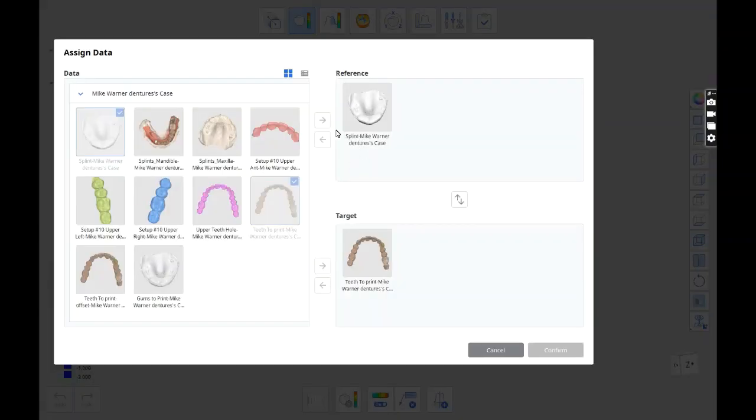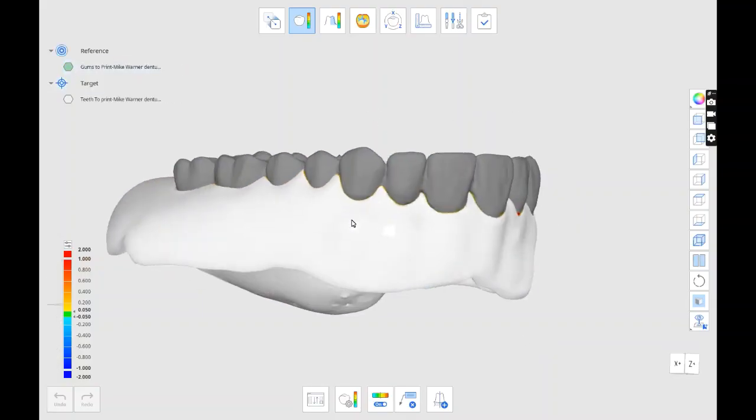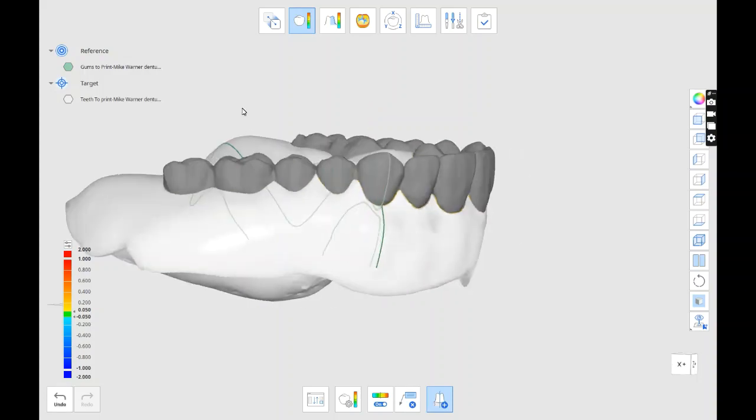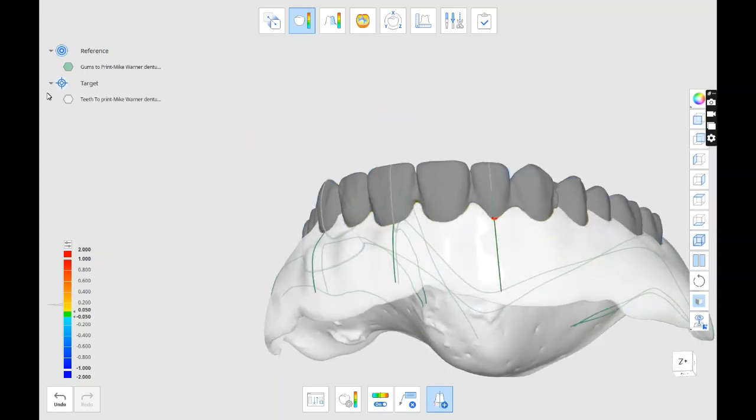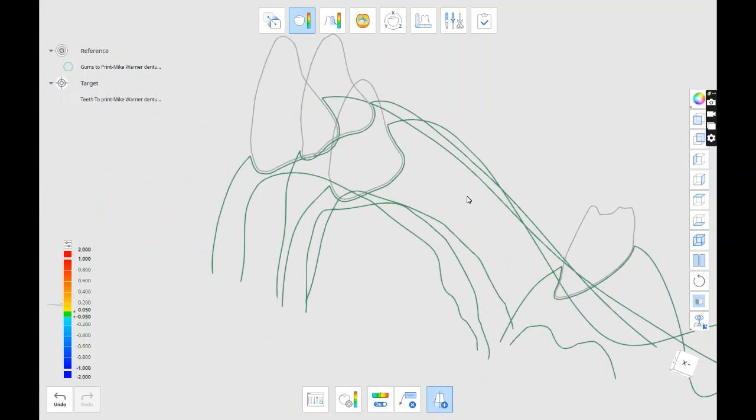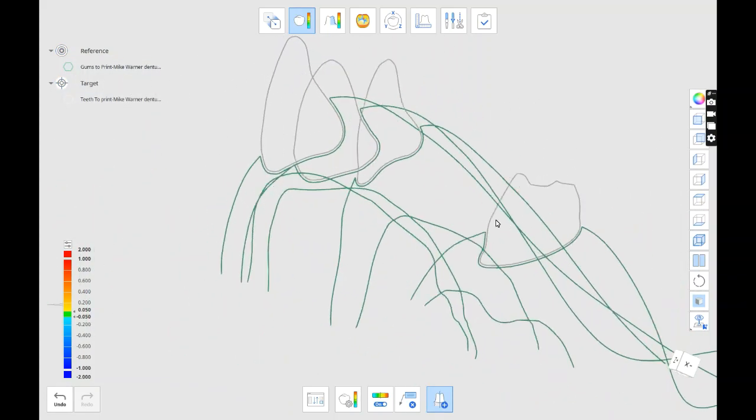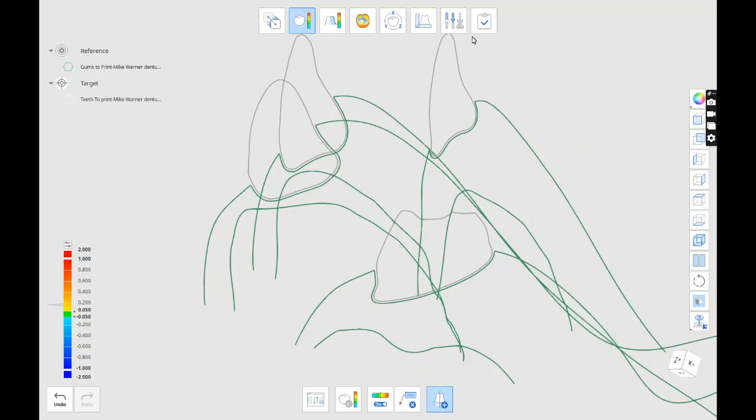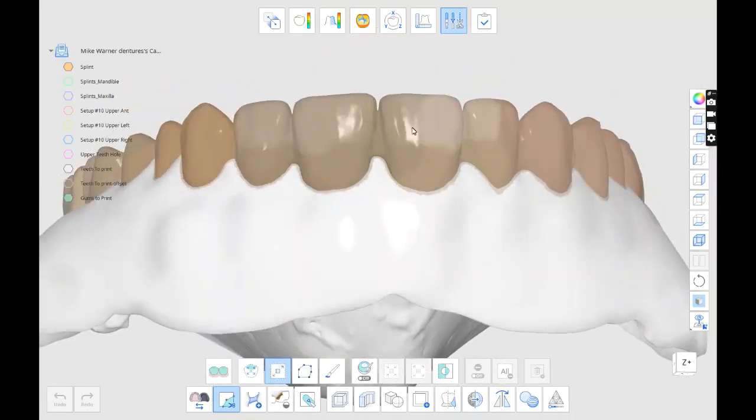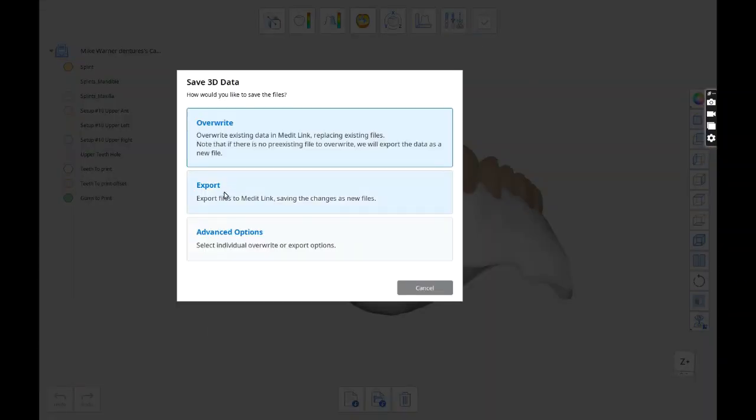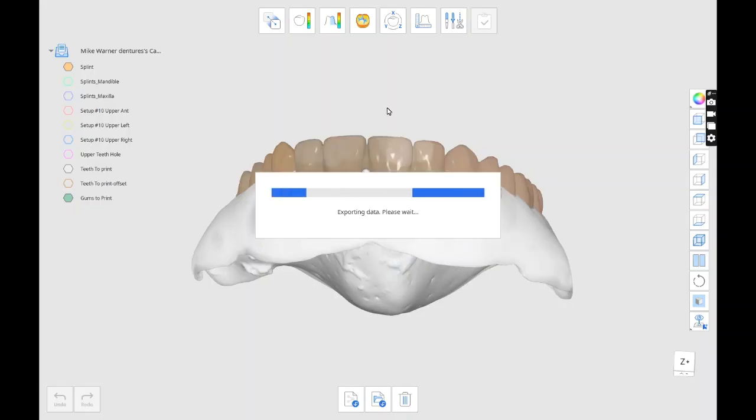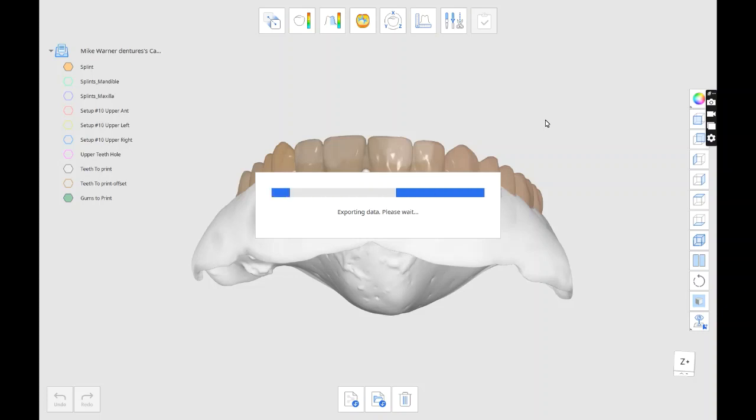Oh, and one thing - I don't know if you notice that, but if you make a modification, you go and grab it and you move it, it'll throw the things off. So you have to hurry and hit the tool button there, next to the check bar, just so when you move the models you don't disrupt the orientation that they both have.